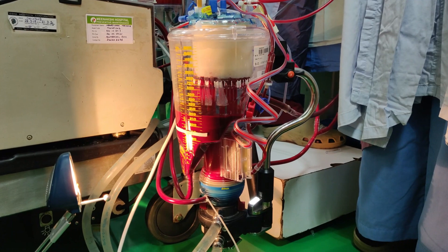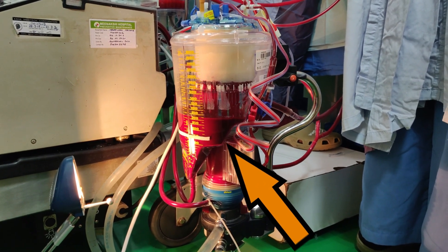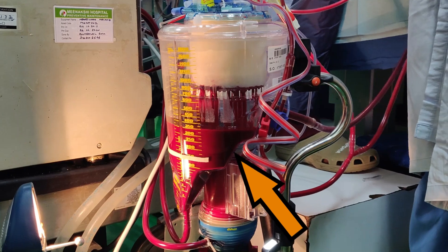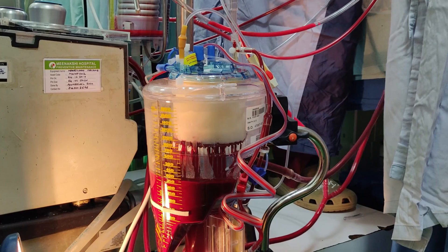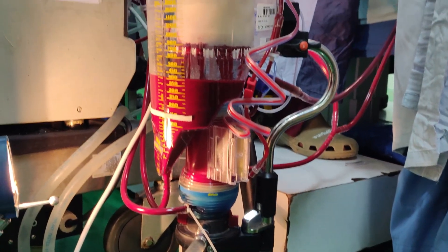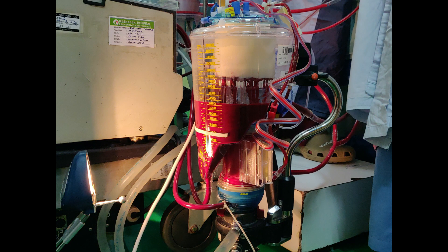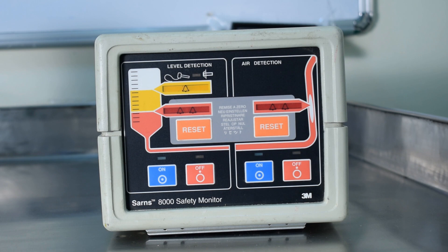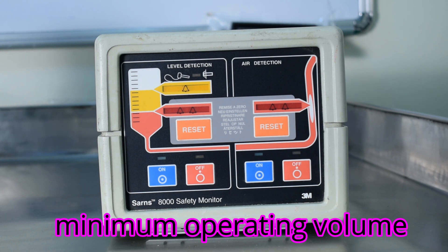A level of fluid is maintained in the reservoir for the duration of CPB. If you overrun the minimum operating volume of the reservoir — usually around 300 ml in adults and around 50 ml in children depending on body weight and surface area — there is a risk of perfusion accidents such as pumping large volumes of air into the arterial circulation and membrane oxygenator, leading to massive air embolism. One must always perfuse keeping in mind the minimum operating volume, and that's where level detectors come in handy.